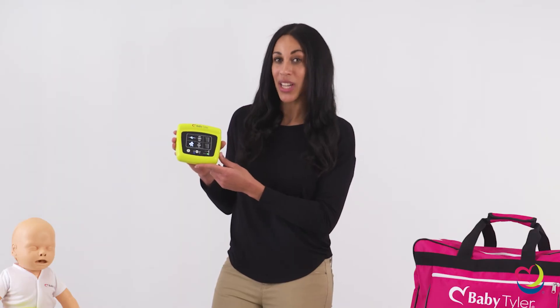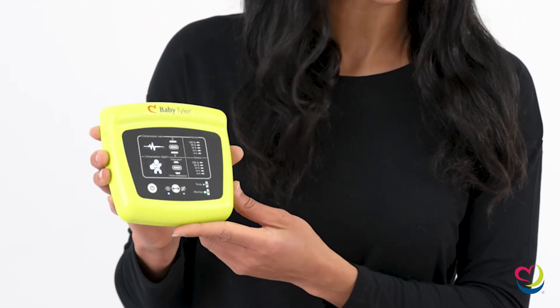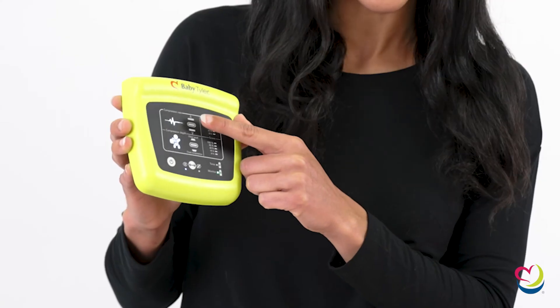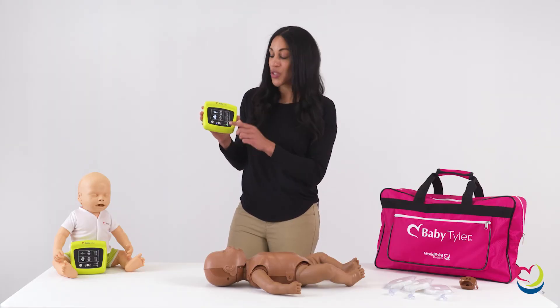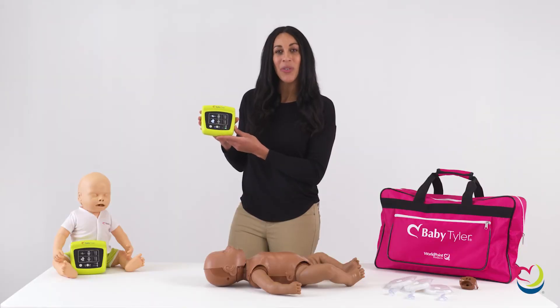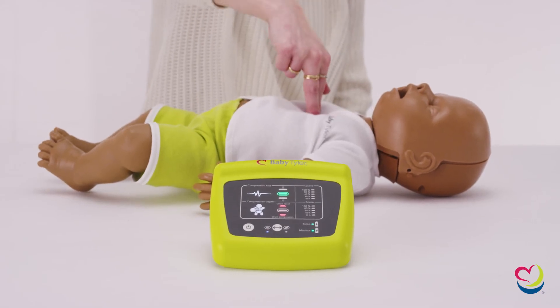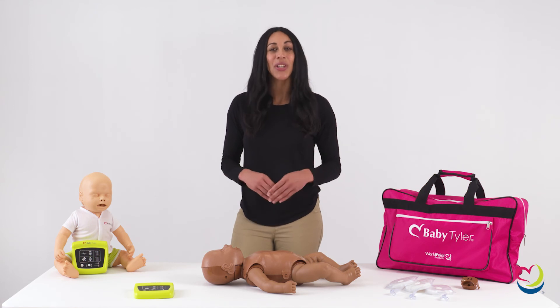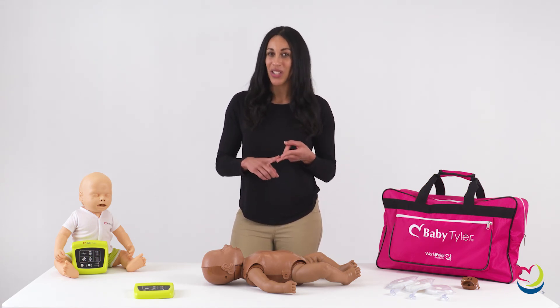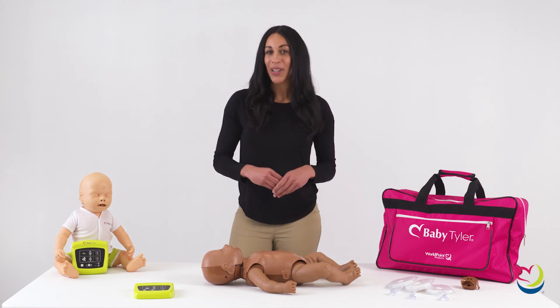Let's take a closer look at the CPR monitor. If you view the compression rate light as indicated on the CPR monitor, you can see if your rate is too high, too low, or in the correct range of 100 to 120 beats per minute. Right below the compression rate indicator is the compression depth and chest recoil indicator. This indicator will show if the compression depth and chest release is too deep, too shallow, or the correct depth of 1.5 inches for the proper chest recoil. You can easily view the CPR monitor while performing CPR and adjust based on the real-time CPR feedback you receive. Once you stop CPR, wait 10 seconds, and you can view the test report — a score given for compression rate and compression depth. This score will be out of 100% and will indicate the quality of CPR given during the practice session.